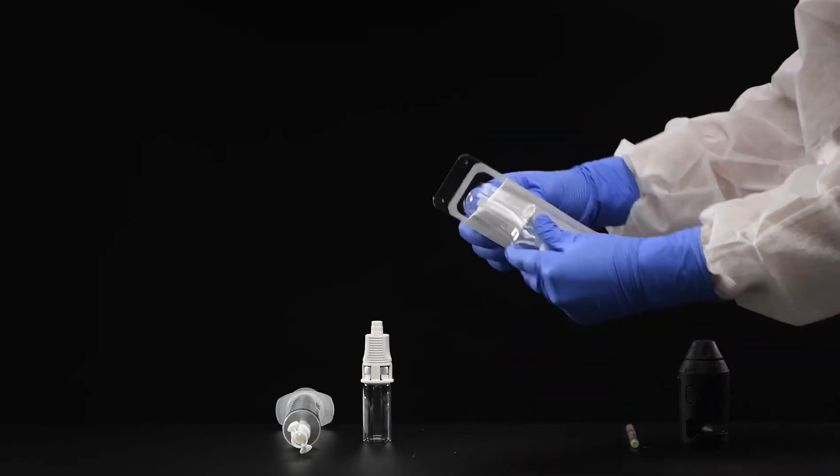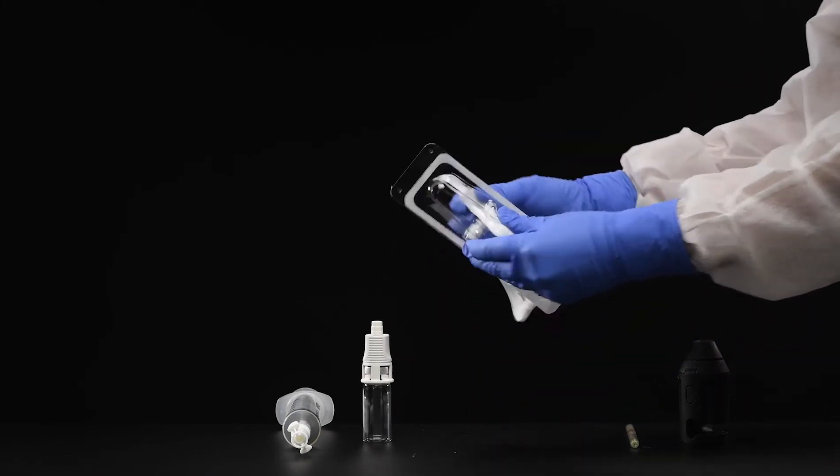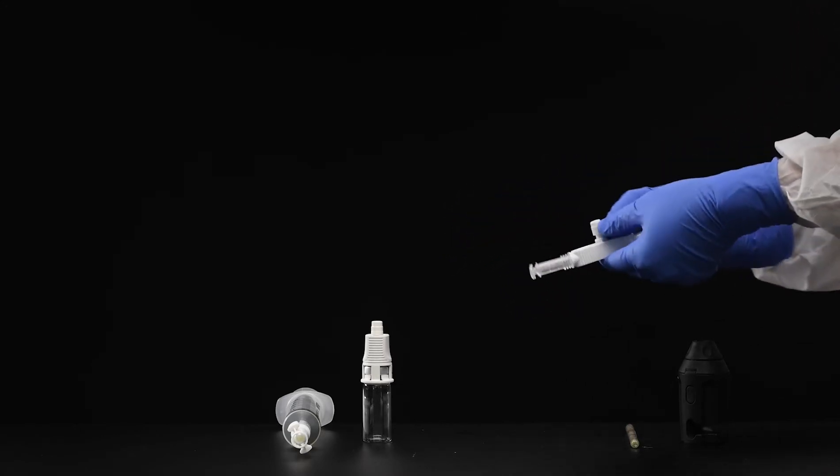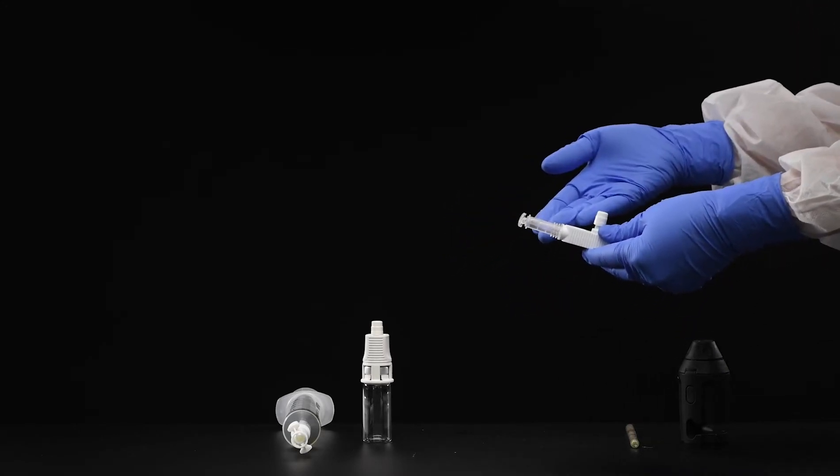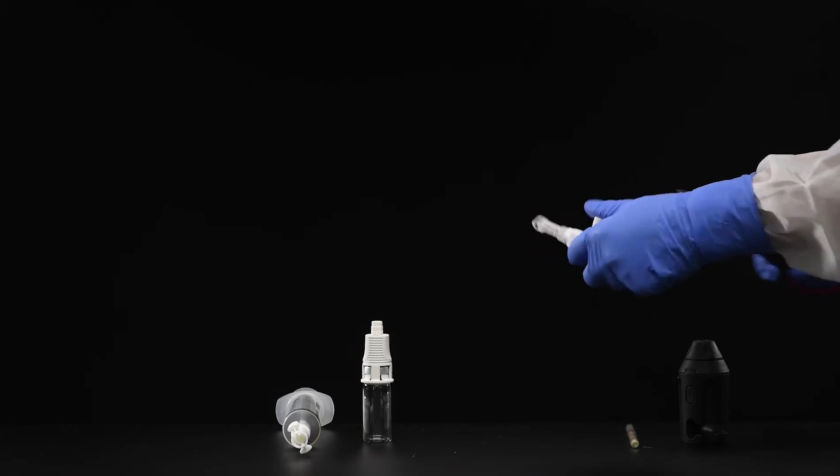Remove the CHEMFORT bag adapter SP from the package. For demonstration purposes, cut off the bag adapter SP tail.